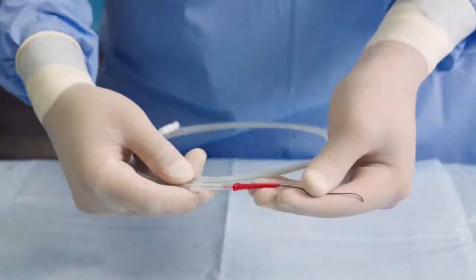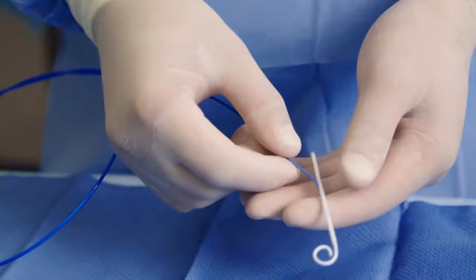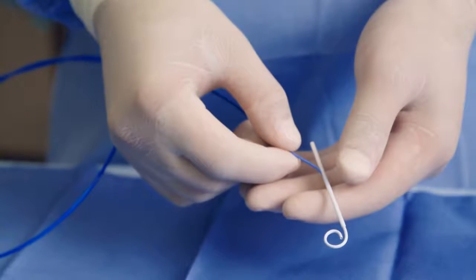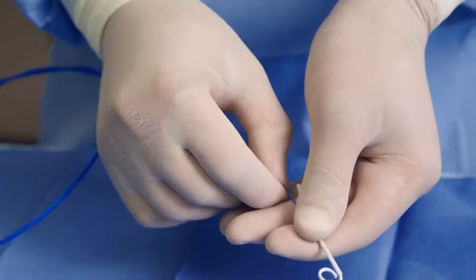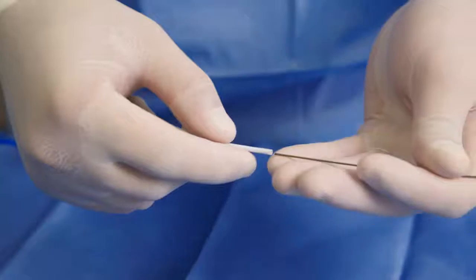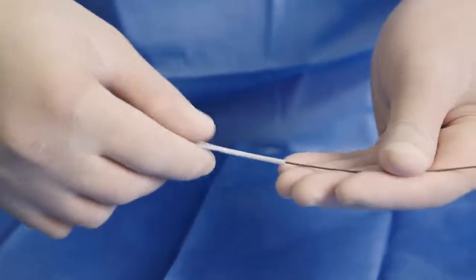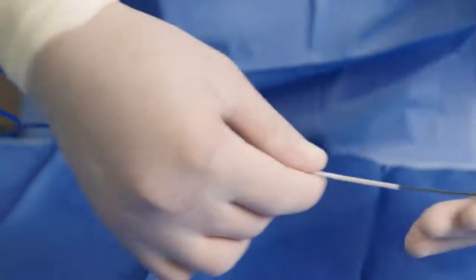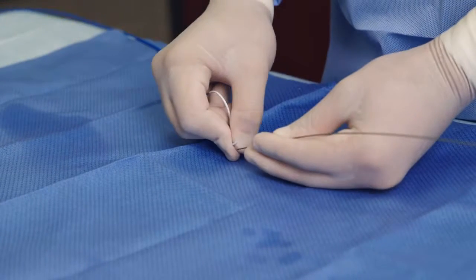The Langston uses a guide wire that is 0.038 or less. The Langston pigtail catheter is supplied with a tip straightener to use at your discretion. If using, slide the straightener distally until both tips align. Alternatively, load the inner lumen of a Langston onto the wire by straightening out the pigtail.